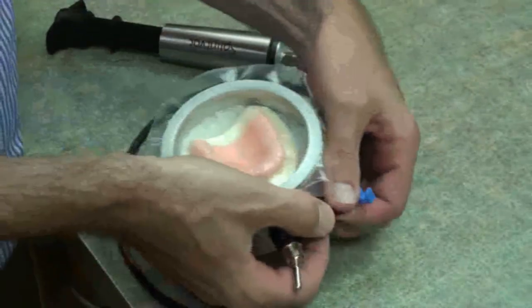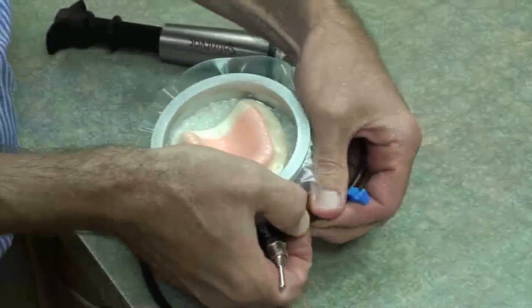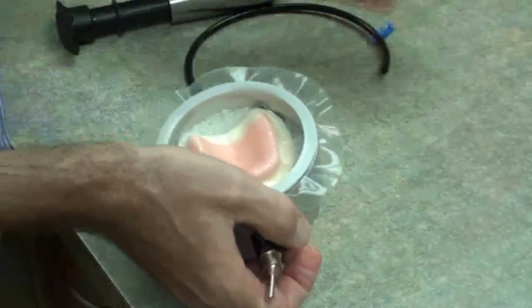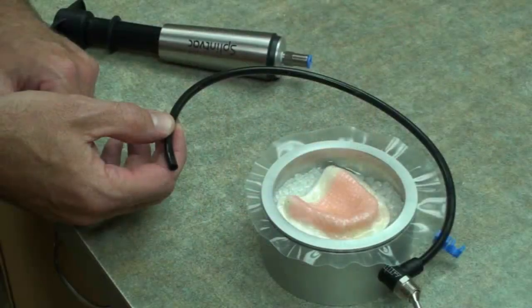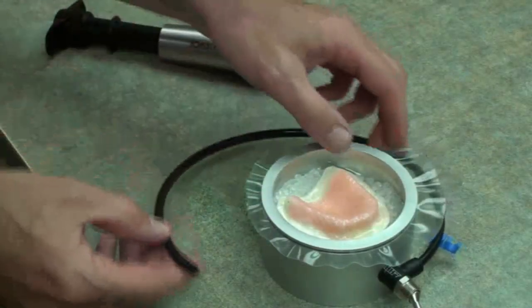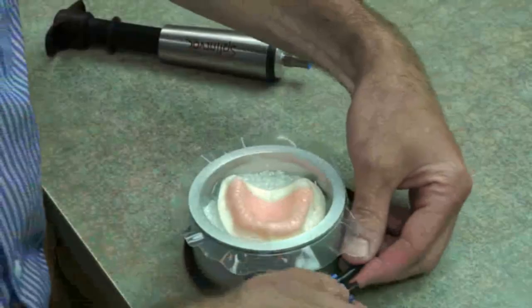Alternatively, the tubing can be removed from the base of the splint vac chamber if preferred. If the tubing stays in place, it's then tied down using the plastic clip.